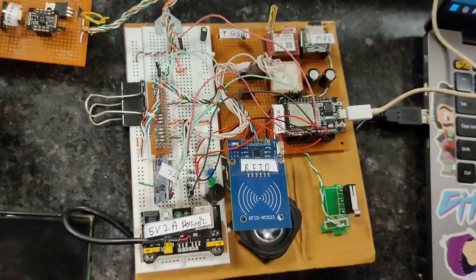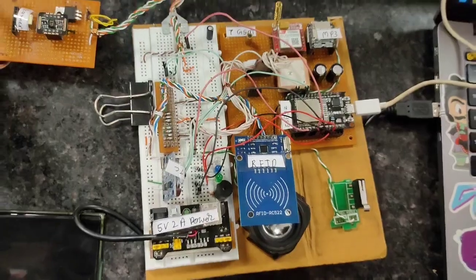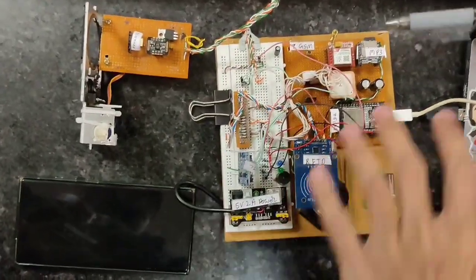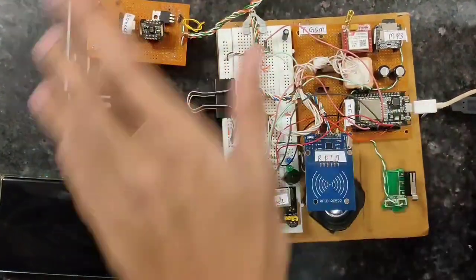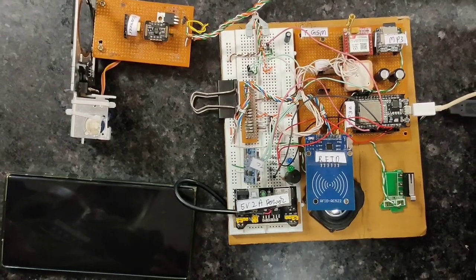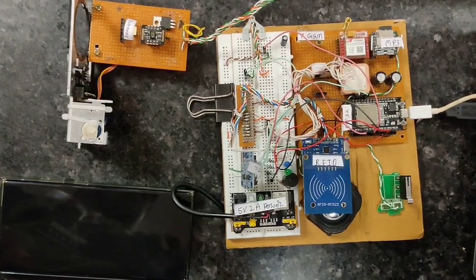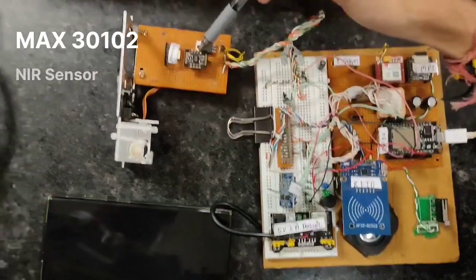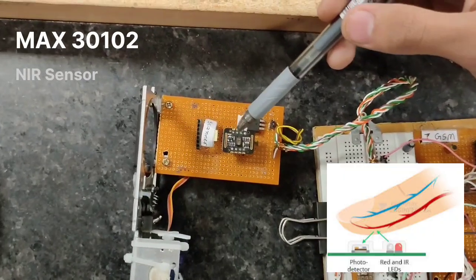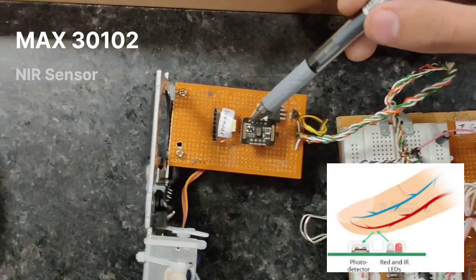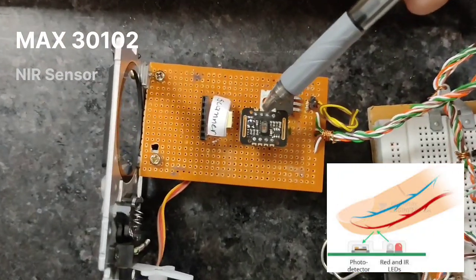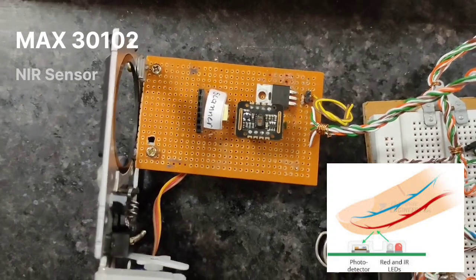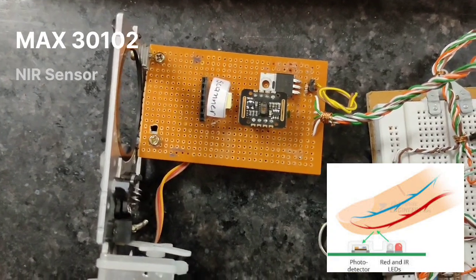Healthies is a healthcare unit like an ATM. This unit combines a set of things which together act as a healthcare unit. We're using a MAX30102 sensor, which is capable of sensing heart rate and SPO2 using infrared technology, or specifically NIR, near infrared reflectivity technology.